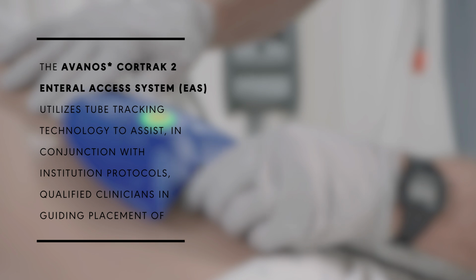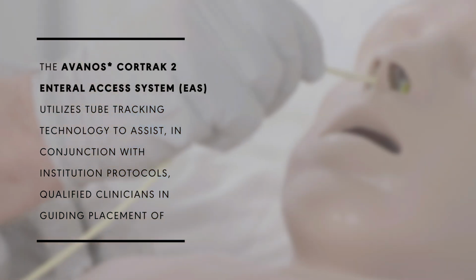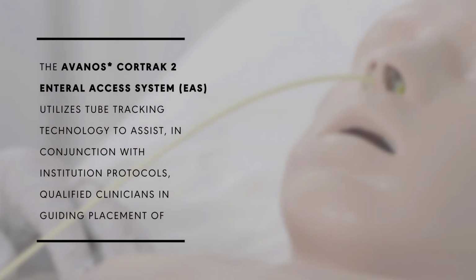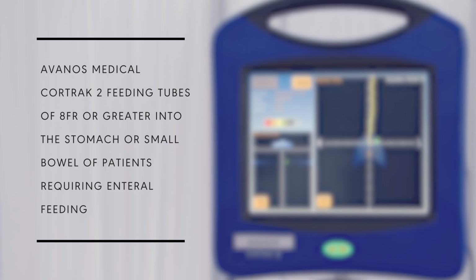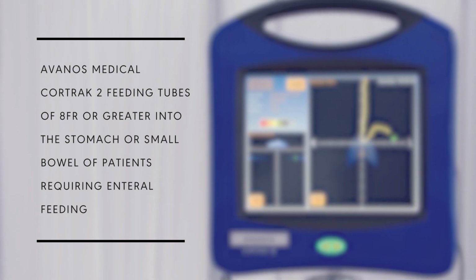The Avanos CORTRAK 2 enteral access system, or EAS, utilizes tube tracking technology to assist, in conjunction with institution protocols, qualified clinicians in guiding placement of Avanos medical CORTRAK 2 feeding tubes of 8 French or greater into the stomach or small bowel of patients requiring enteral feeding.